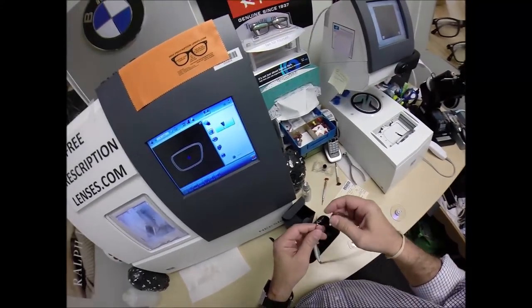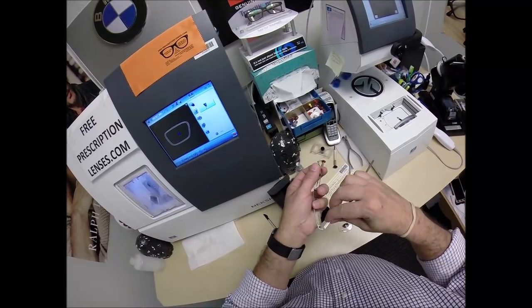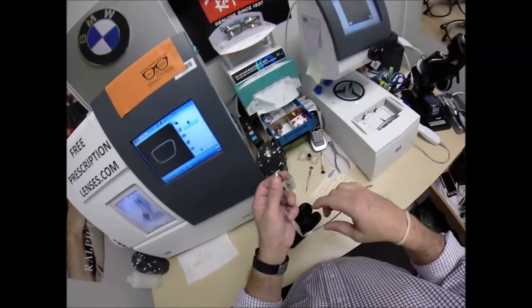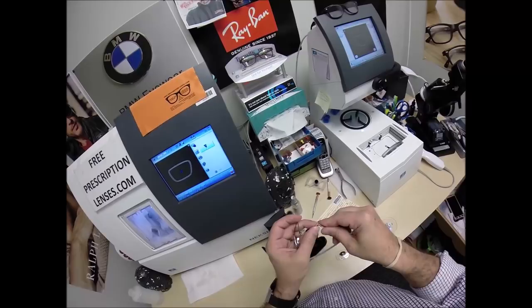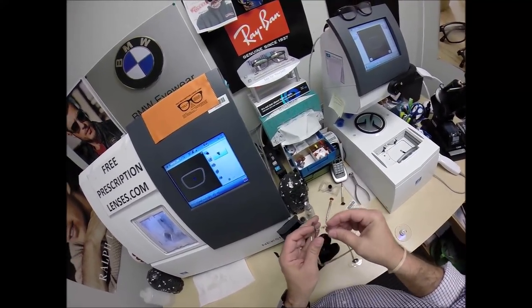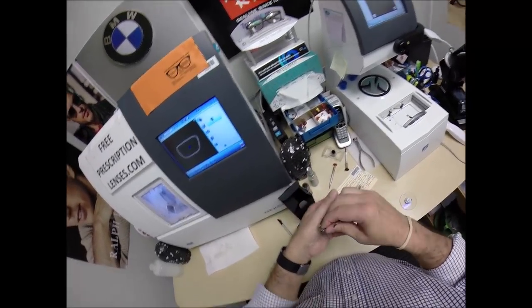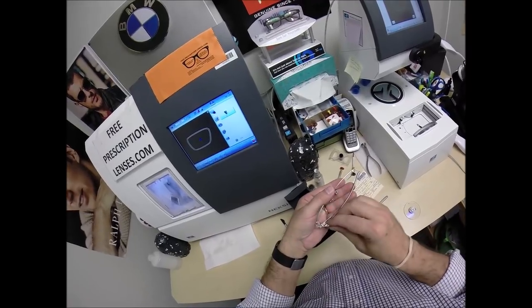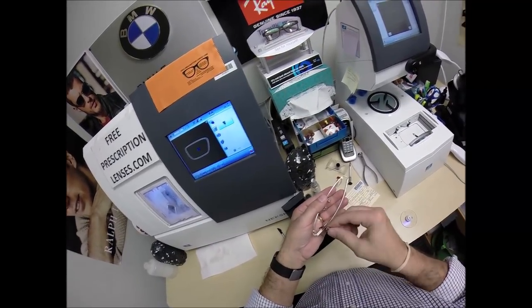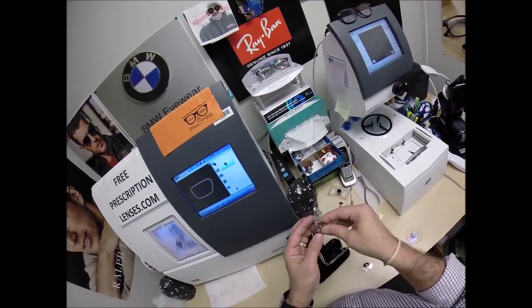So it took three tenths of a millimeter off going around — now it's got to cut a slightly deeper groove. I'm glad I stopped before cutting the left lens, although I could always go back and resize the right after doing the left. From experience, these metal grooves take a few times resizing. Let me study this for a minute — I believe the lens goes in from the inside.